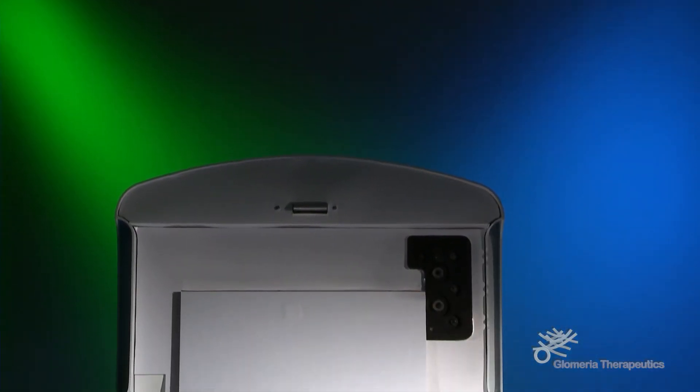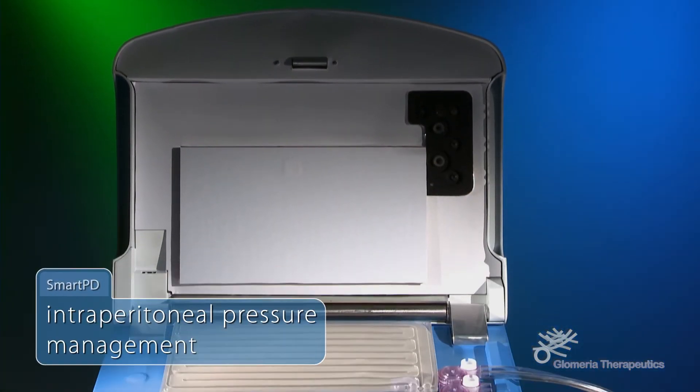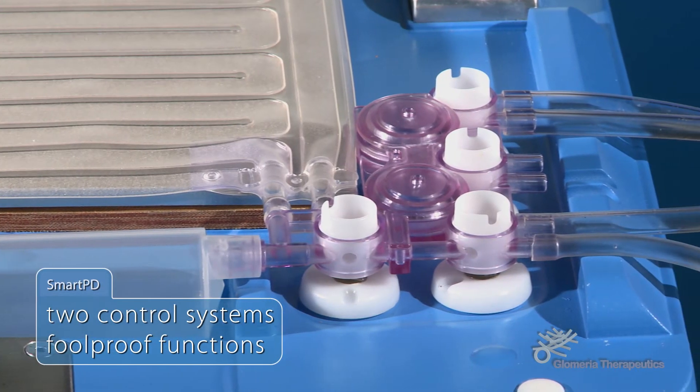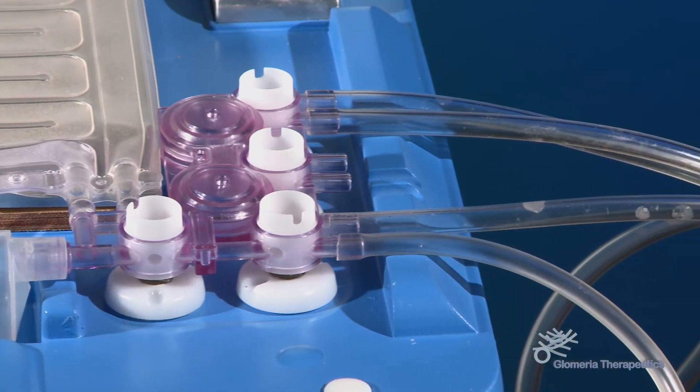SmartPD includes a highly sophisticated intraperitoneal pressure management system using two control systems with foolproof functions, lessening the risks of overfilling.